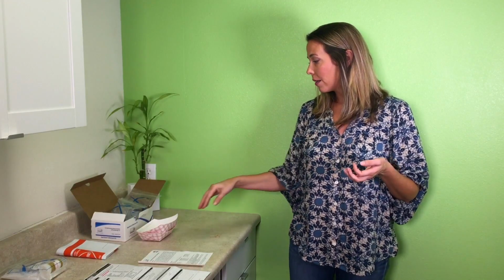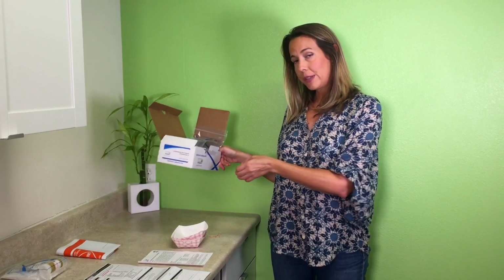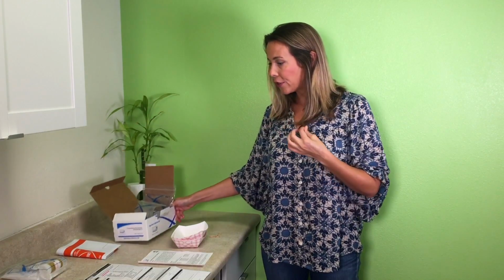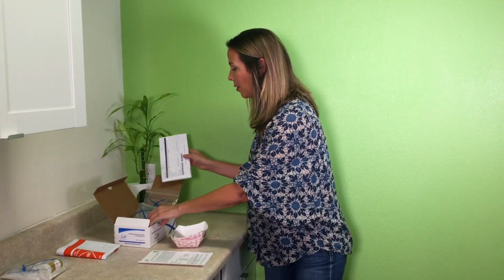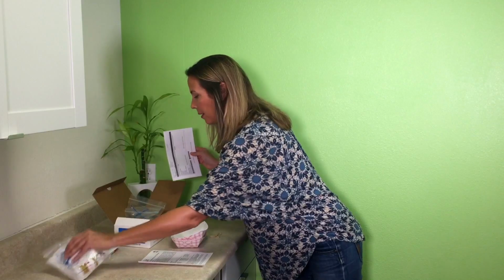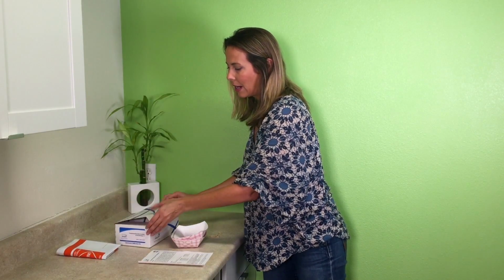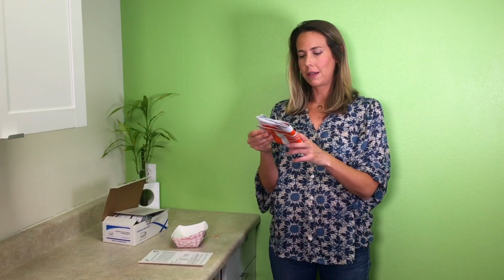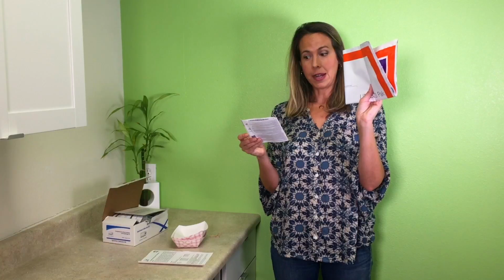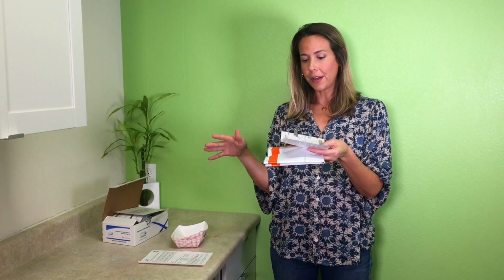Once you're all ready to ship them, you're going to take all the vials in their Ziploc bags, and make sure they're labeled. You're going to put the requisition form that's all filled out also in the box. You're going to close the box, and then the box goes in the FedEx envelope that is provided. And then there's a billable stamp here that you slap on and it's all ready to go.